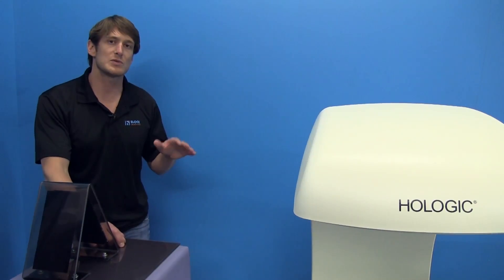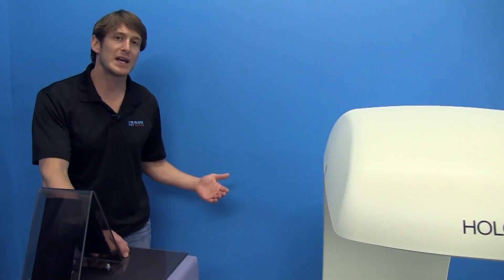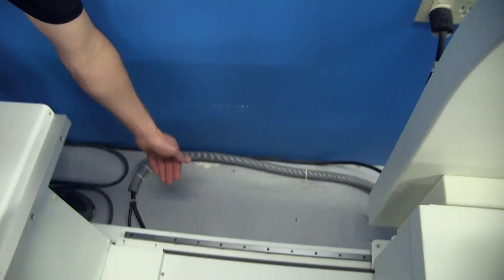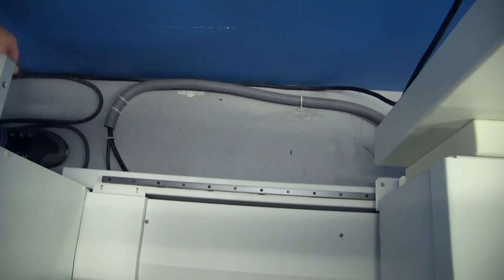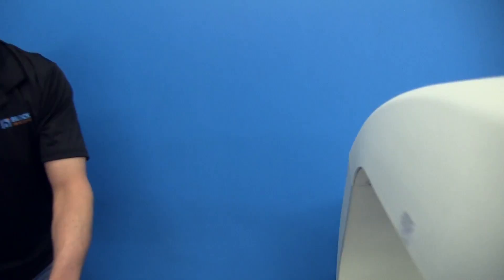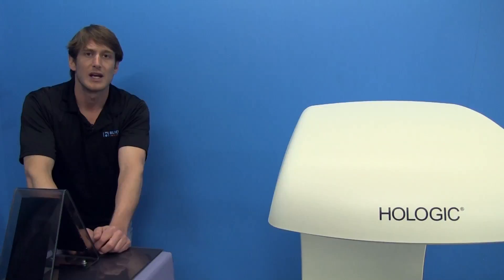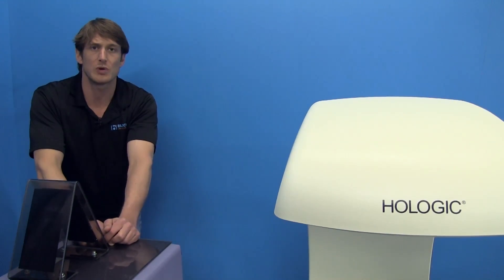All systems will have a serial sticker on the back-hand side of the system. If you look down at the frame down here, there's a sticker on the back-hand side. On that sticker, you will find the serial number, manufactured date, and also what model of system you have.